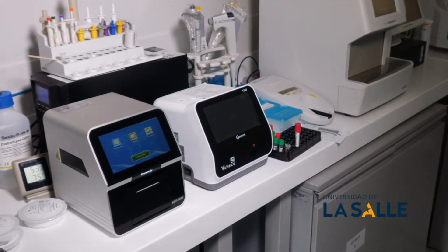In terms of the analysis, we have the blood count with which we perform our hematocrit control to determine if our patient has an adequate erythrocyte volume or if he or she is presenting an anemia process or perhaps a dehydration process. We also evaluate the leukocytes or white cell line, which our explanation is focused on the immune response of our patients. Through this blood picture, we not only review the patient's current condition, but we can also better focus on diagnosis, treatment and complementary tests if necessary.